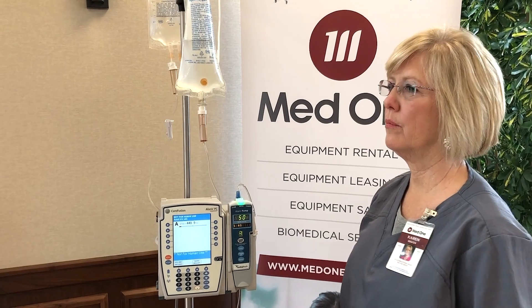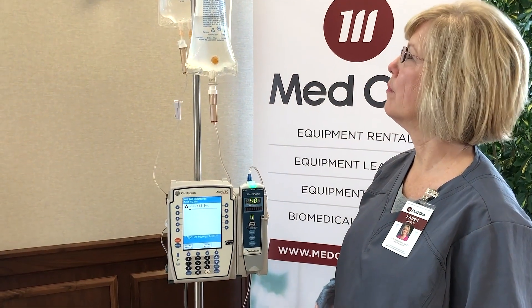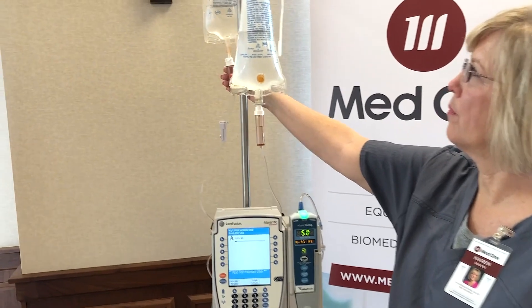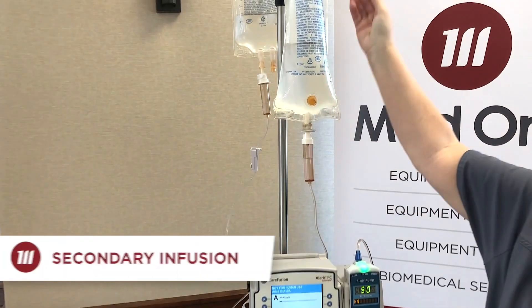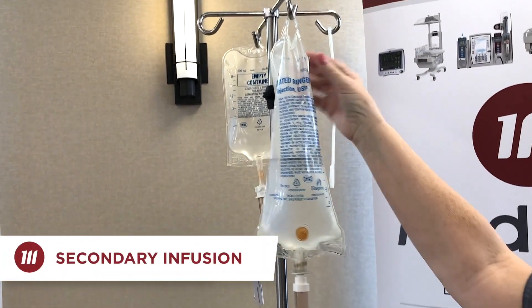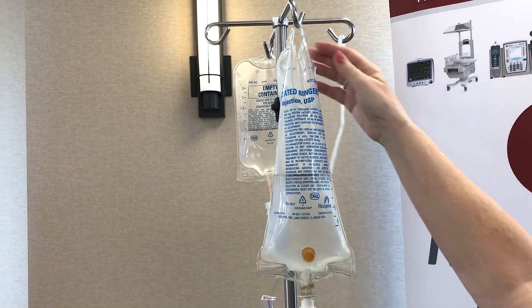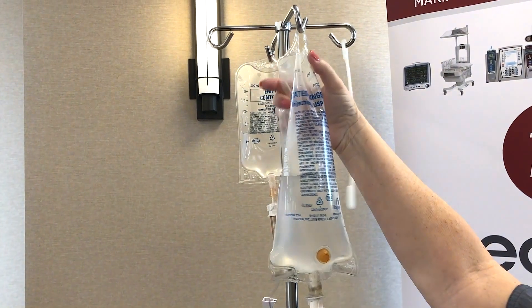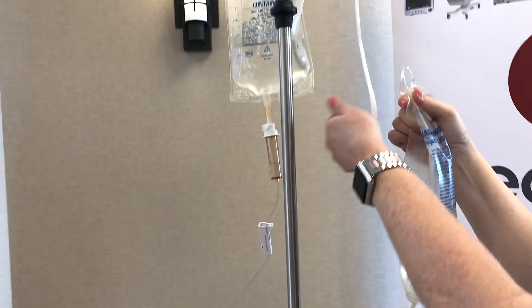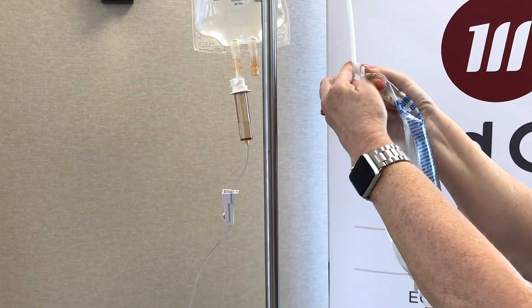We've gone ahead and primed our antibiotic, our secondary infusion. We're going to utilize the hanger that came in the secondary bag, and we're going to lower our primary fluids and keep our secondary fluids higher.